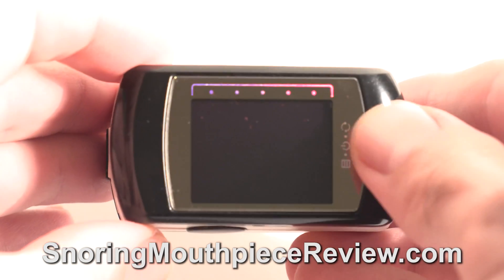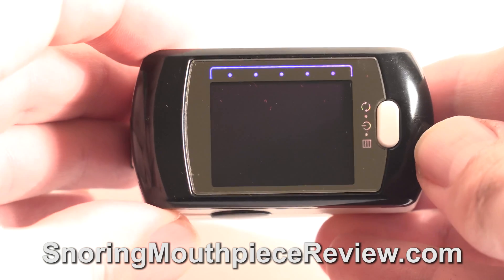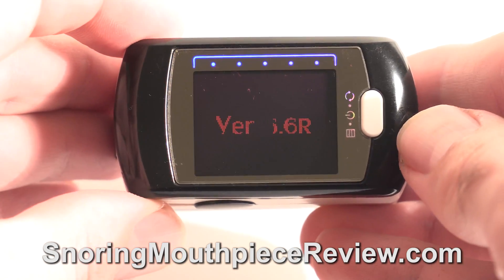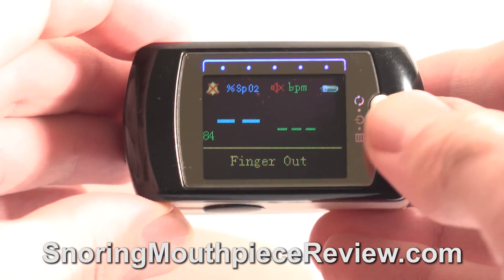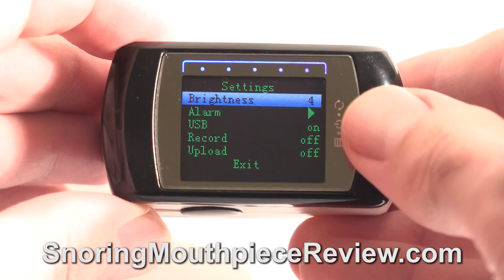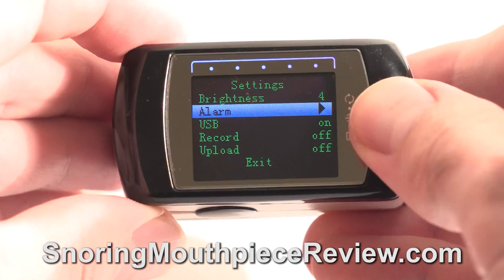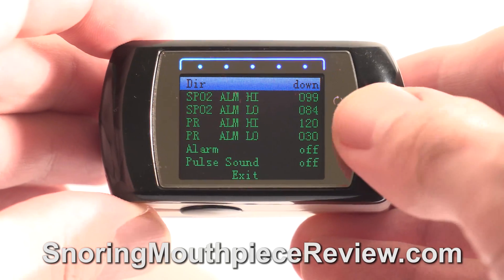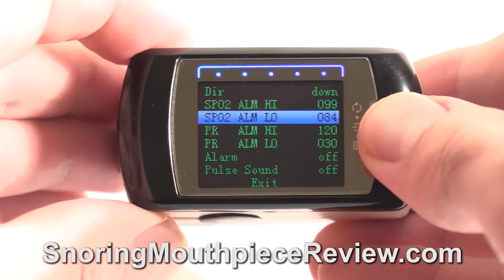You turn on the pulse oximeter by holding down the button. It will display a welcome message in the current version of its firmware. Pressing the button again once it starts brings you to a menu. If you want to receive an alarm when your oxygen or heartbeat falls below a certain level, you can set the thresholds and alarm settings here.